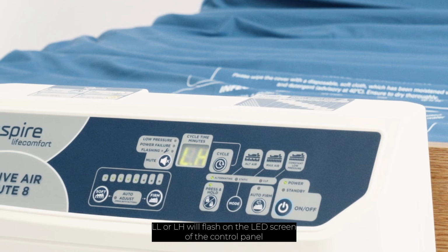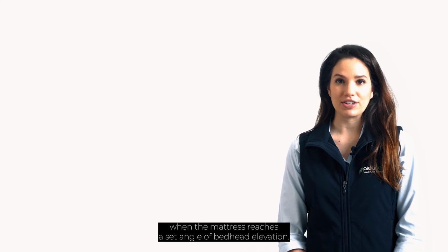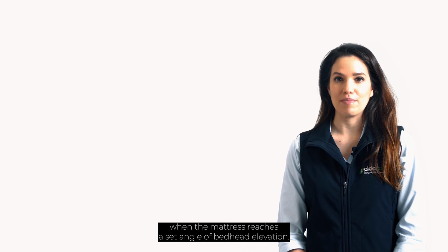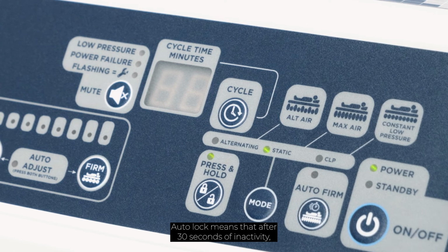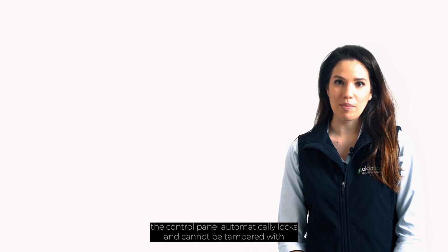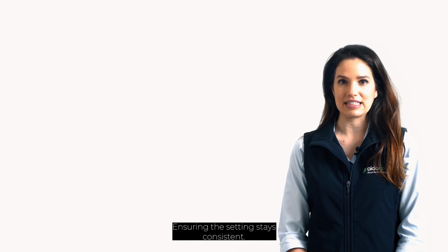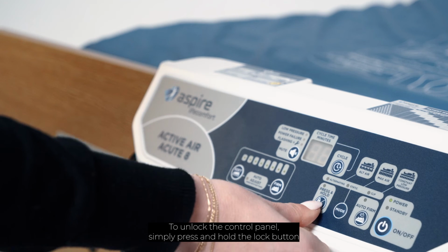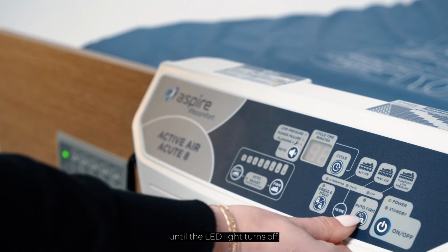LL or LH will flash on the LED screen of the control panel when the mattress reaches a set angle of bed head elevation. This indicates the Auto Protect feature has been activated. Auto Lock means that after 30 seconds of inactivity, the control panel automatically locks and cannot be tampered with or accidentally changed, ensuring the setting stays consistent. To unlock the control panel, simply press and hold the lock button until the LED light turns off.